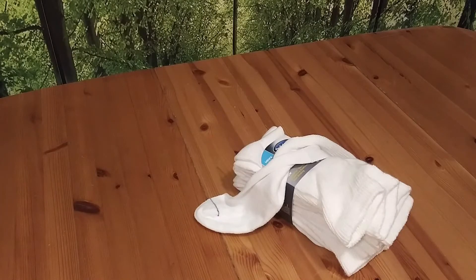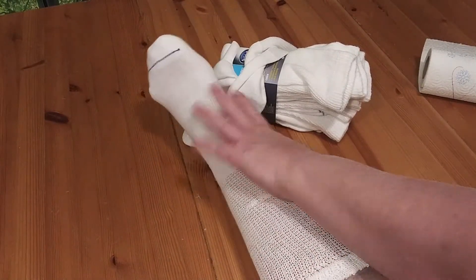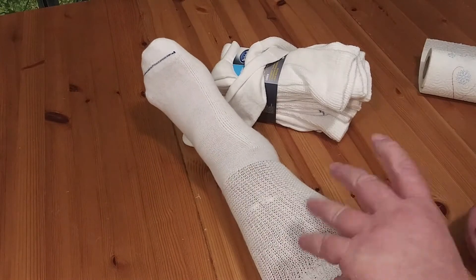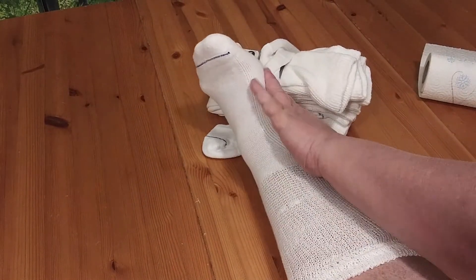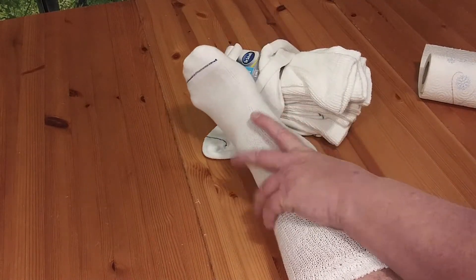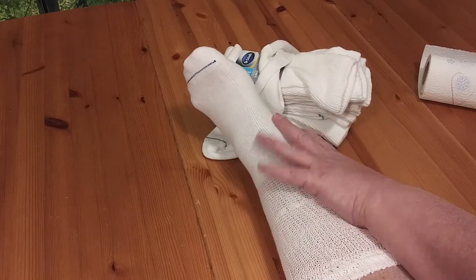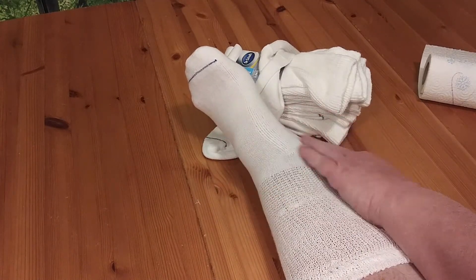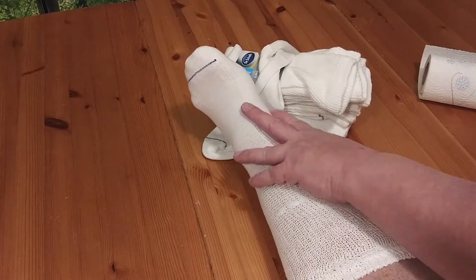I'll go ahead and put one on. They come up about half-ways up to your knee, at least on me. Like I said, they don't cut into your leg, and they are nice. They're not overly tight, but they're tight enough around your feet. My feet didn't get hot, my feet didn't get cold, my feet didn't get sweaty, and to be honest, didn't have no odor. And I wore them all day.